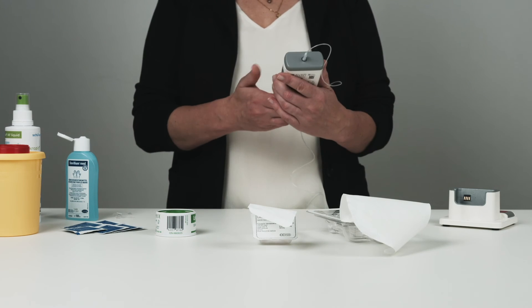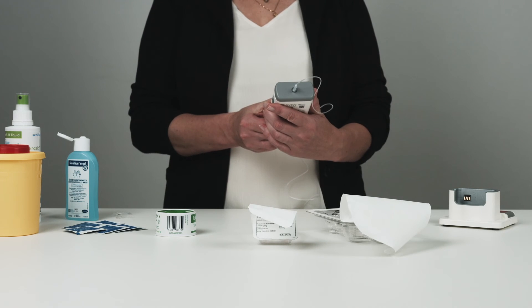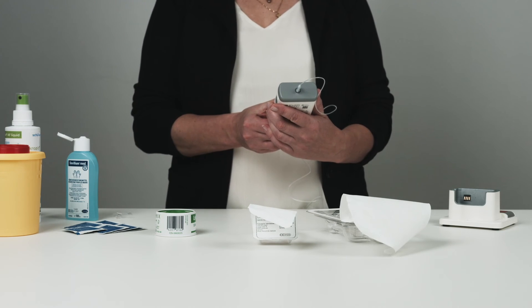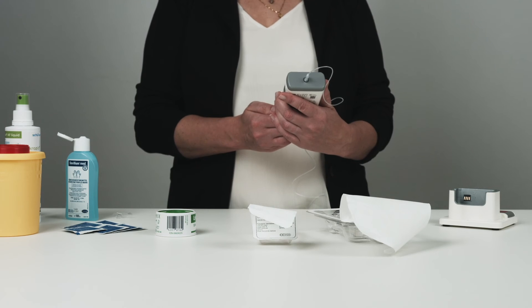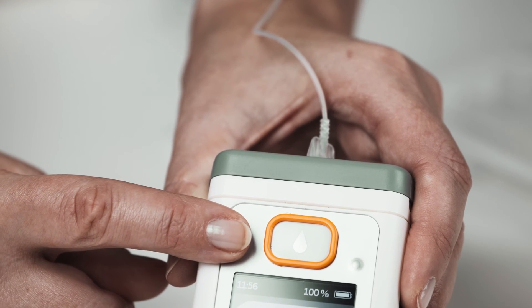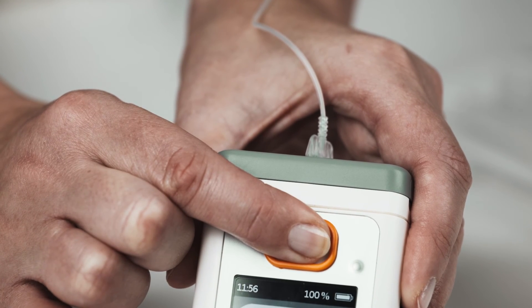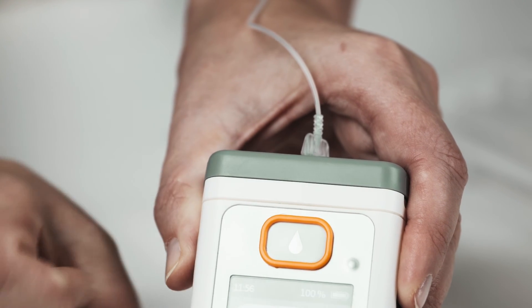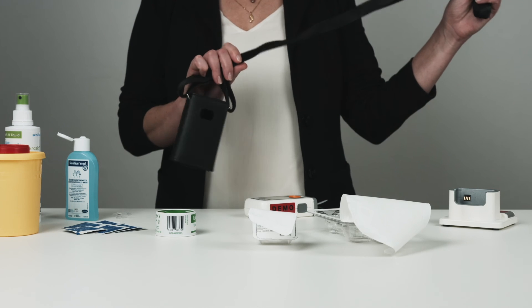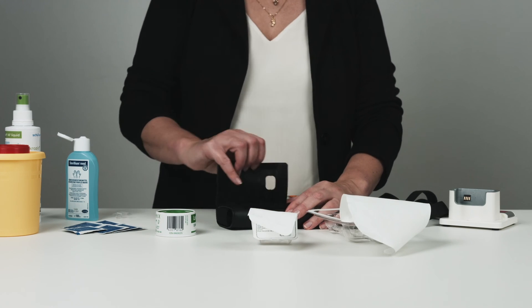Press the checkmark button again. To start the continuous infusion, press the start button for 3 seconds until you hear a beep. The patient can also give themselves an extra dose, also called a bolus dose, by pressing the big orange button. The patient wears the pump in a carrying case throughout the day and in some cases also during the night.